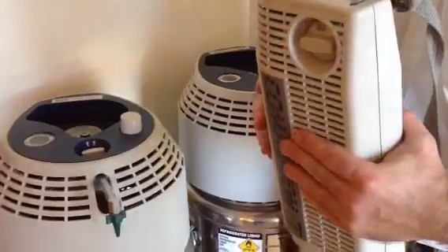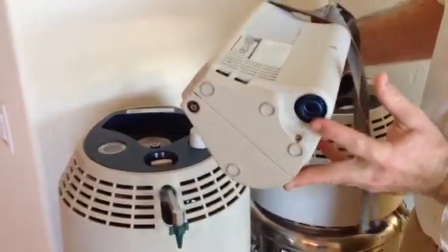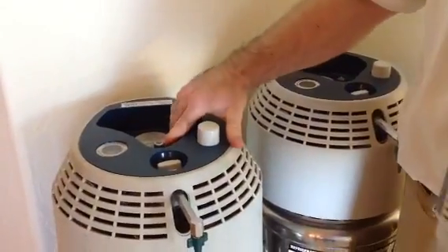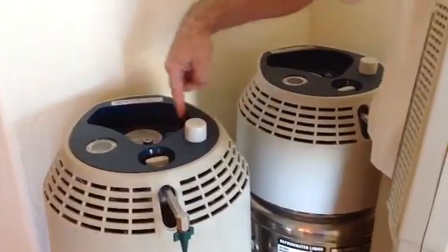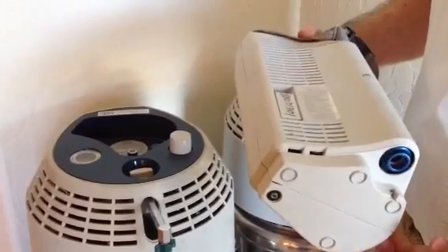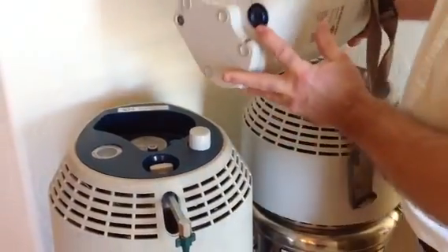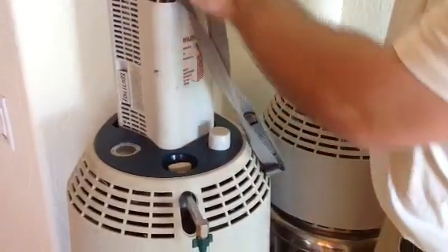To properly fill a portable off of a base unit, we're going to connect this blue inlet — this blue connector piece — which is going to match up perfectly with the blue piece on the base unit. You will see this cut-out shape matches nicely with the shape of the portable unit, so it's only going to fit on one way, which is nice. You're just going to connect these two pieces and press securely down.